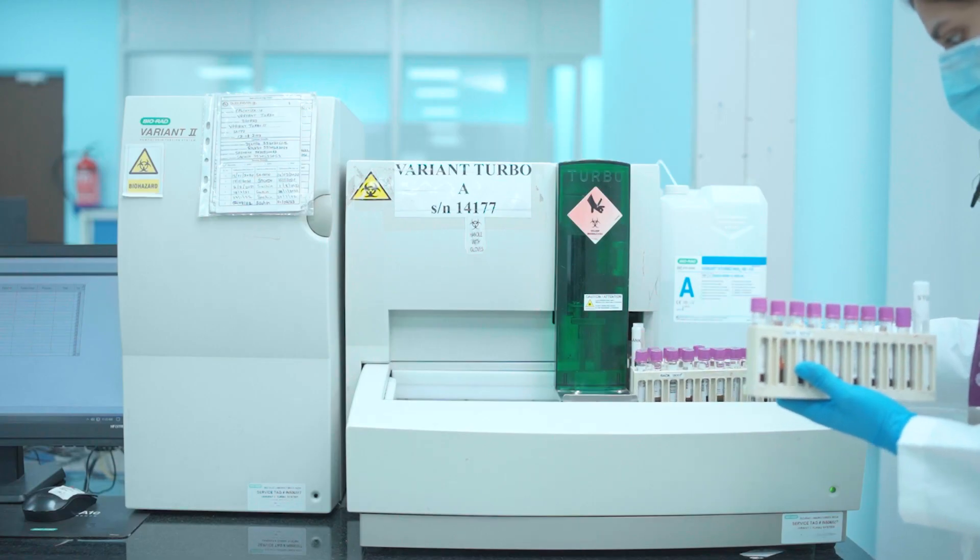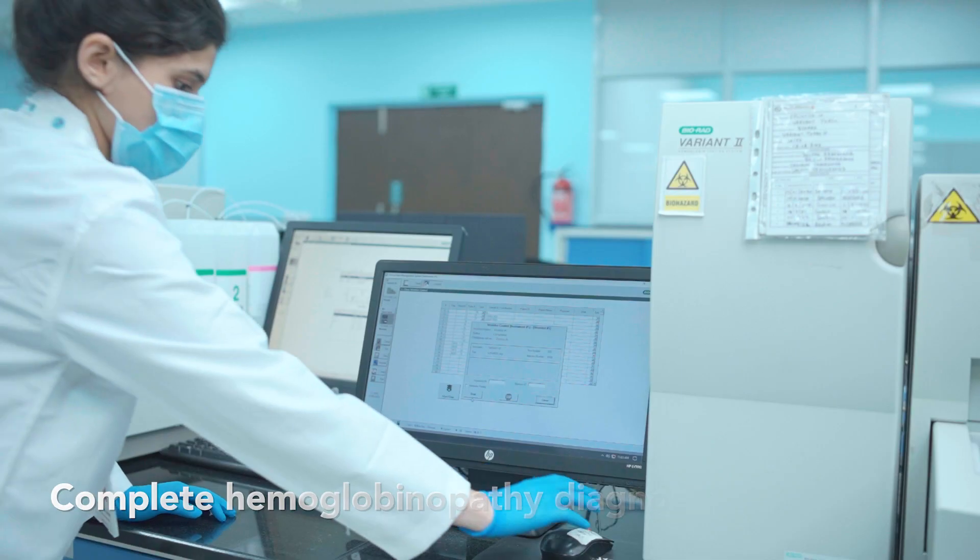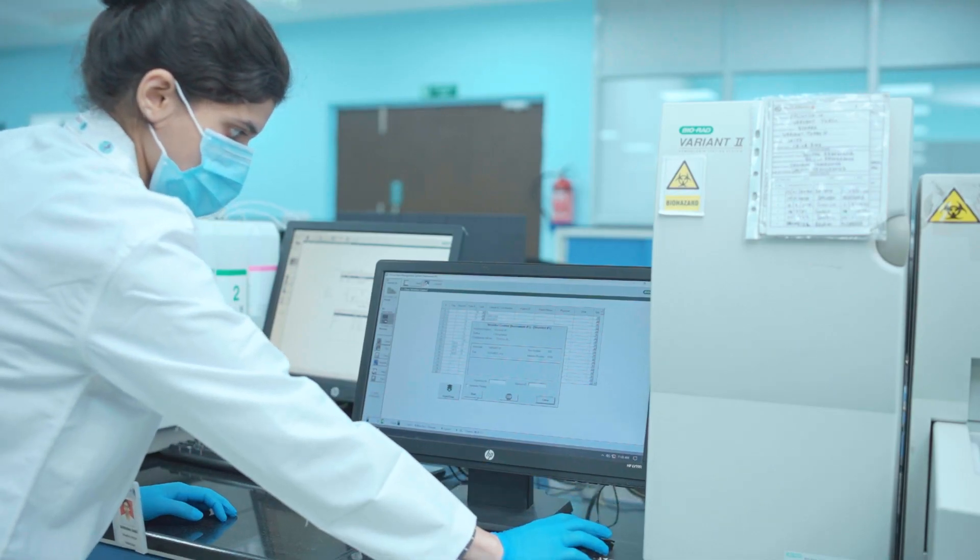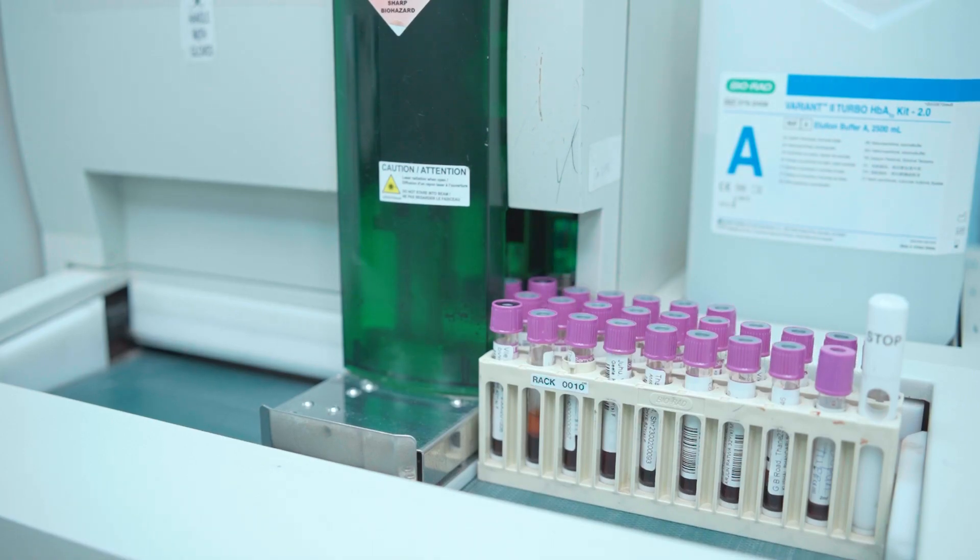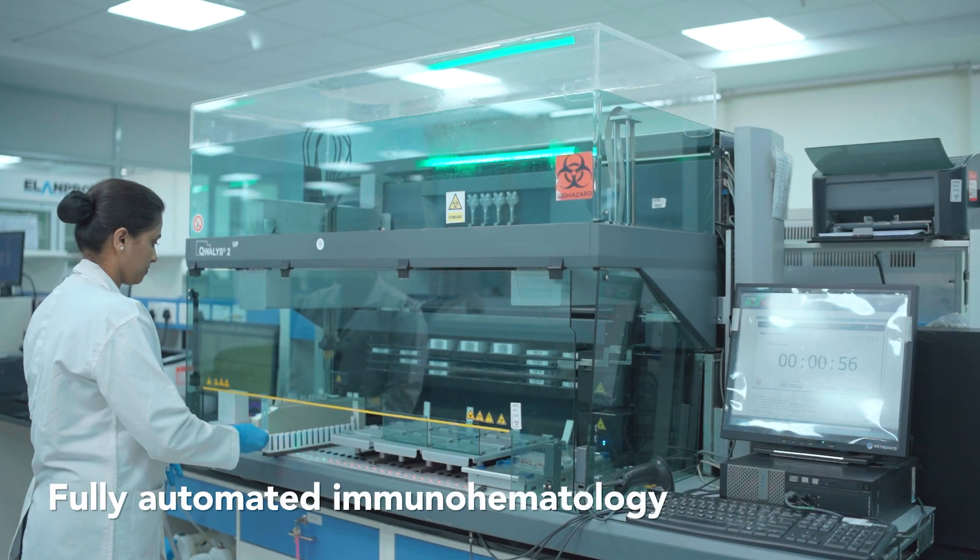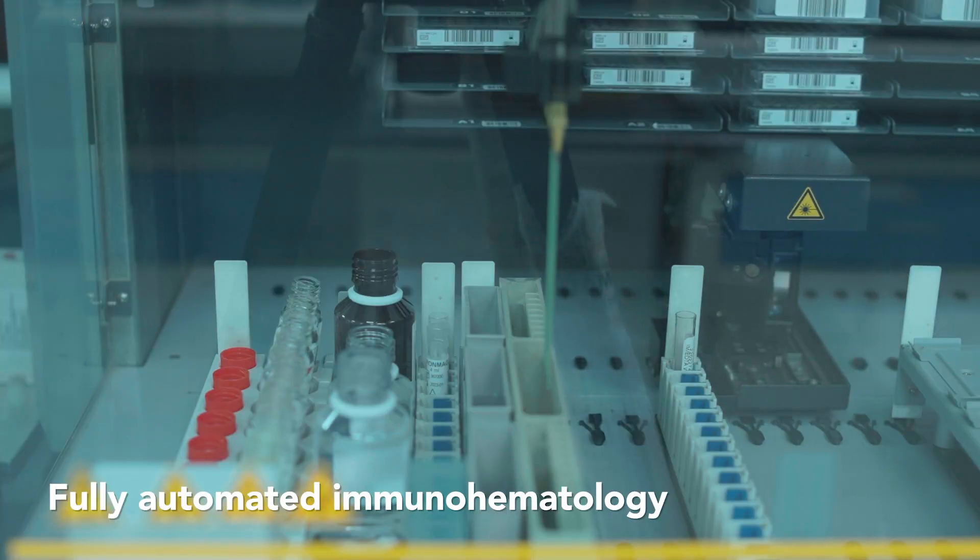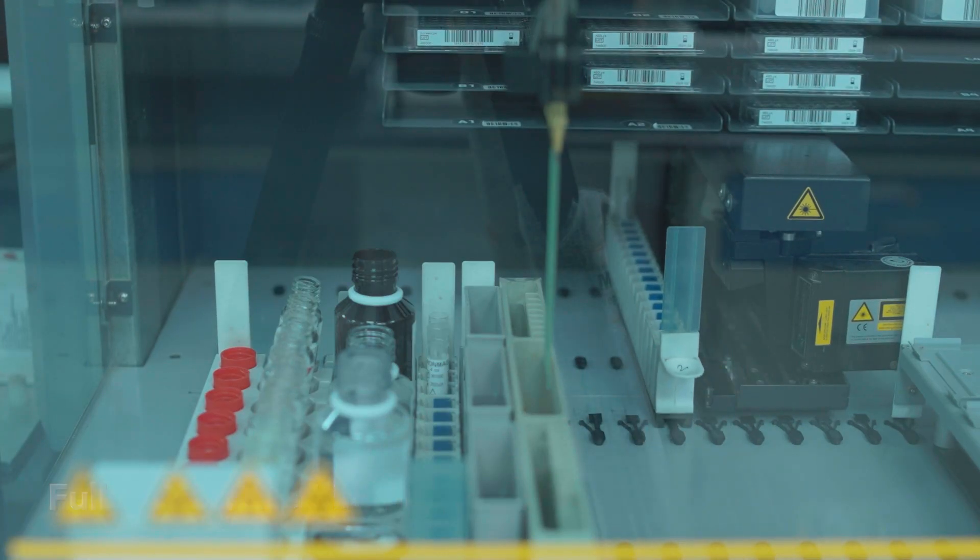We provide diagnostic solutions for hemoglobinopathies using HPLC along with confirmation using molecular testing when required. Complete automation in immunohematology for providing ABO blood group and Coombs testing.